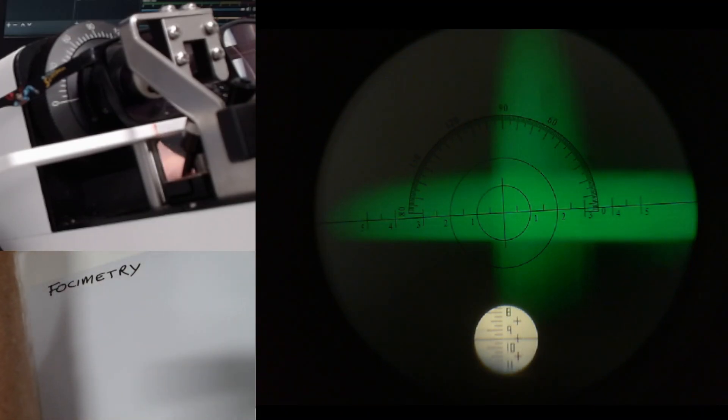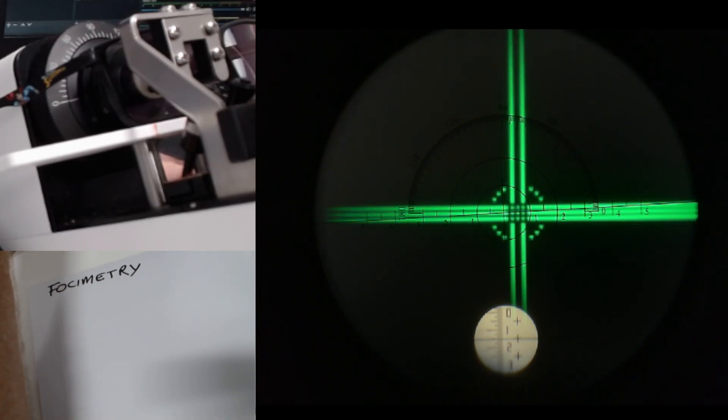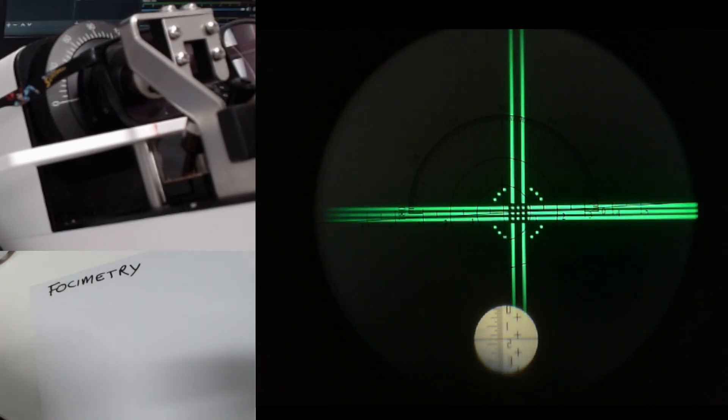I'm going to wind the scale slowly down towards the minus. Can you see that when we get near to the power, if I swing between a little bit minus and a little bit plus, just to try and make sure that we get it nice and central.